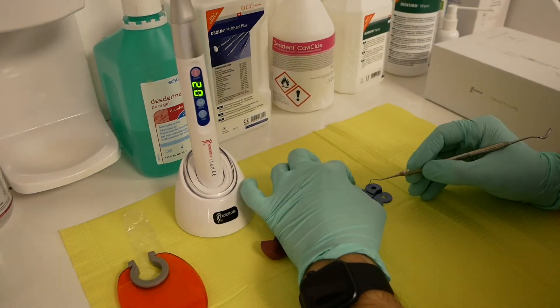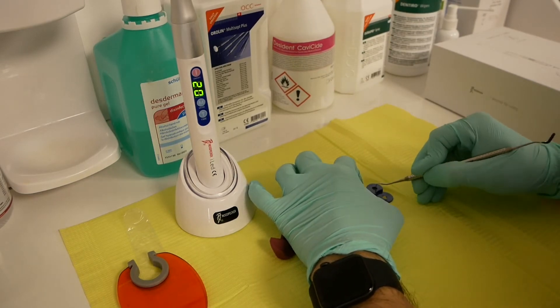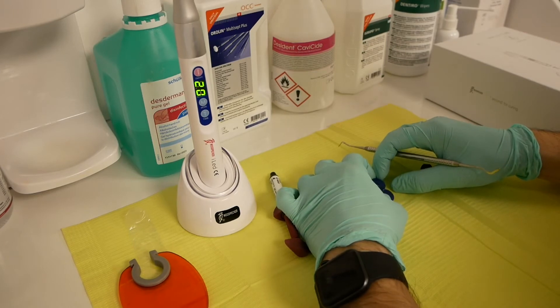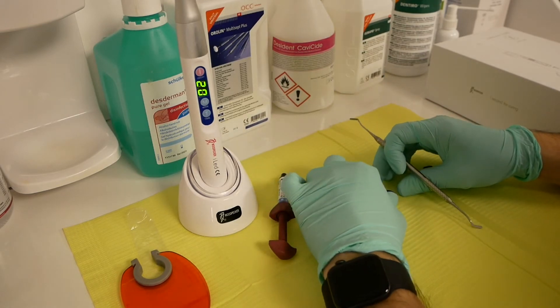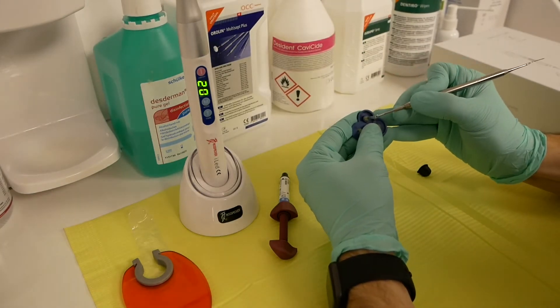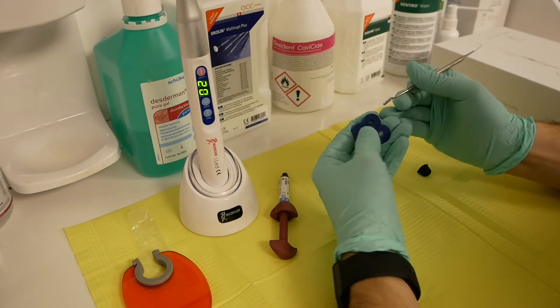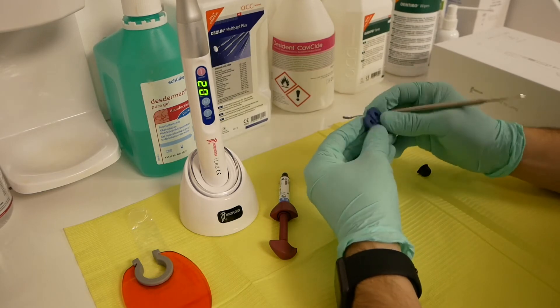Also completely cured. Yep, completely cured and stuck — like this. Even at 4 millimeters it's completely cured using the normal program.